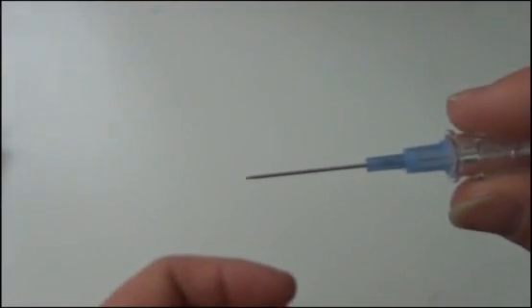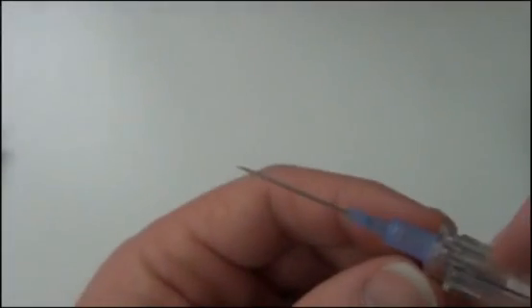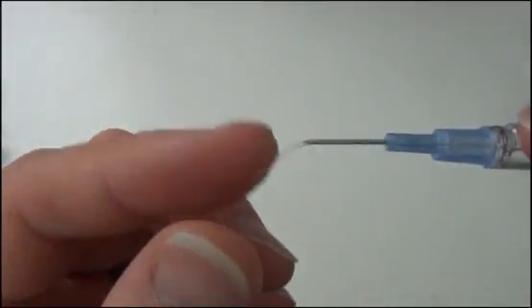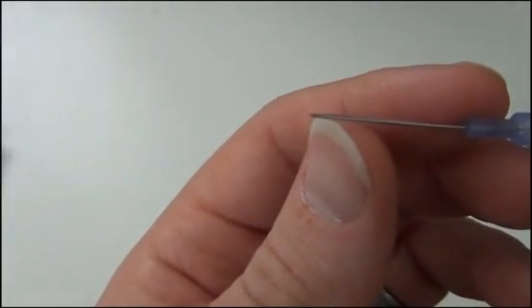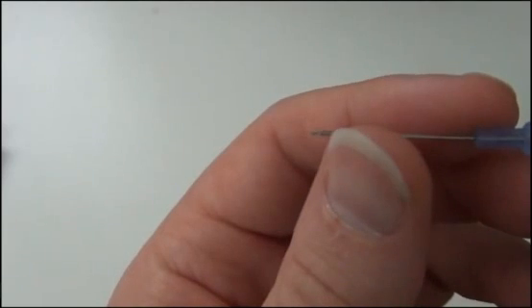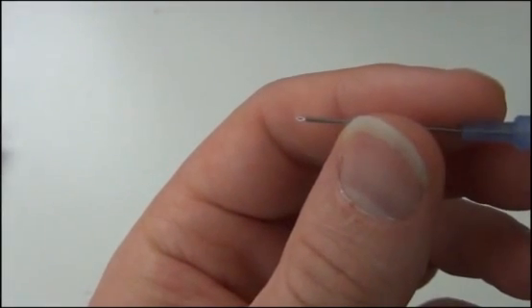Now, of course, when you're actually starting the IV, you're going to want to do it with the bevel up. If we're going into a patient, we need to have that sharp surface, as you can see it right there, to penetrate the skin and to advance it. Now the only thing we're using the needle for is to get into the skin. On top of this needle, there's the catheter. That's what actually stays inside the patient. So the needle, the sharp part of the needle there, is what we're using to actually penetrate the skin and get into the vein.